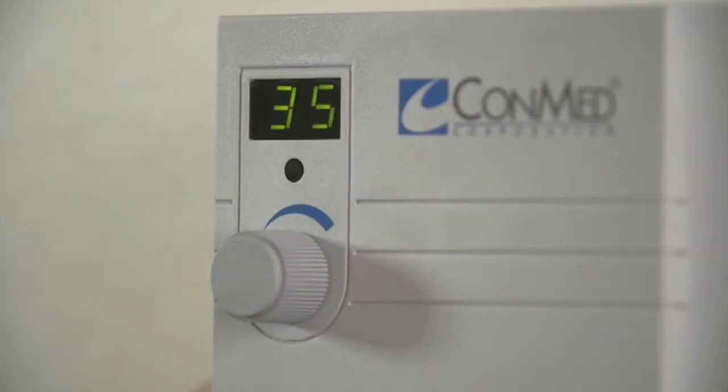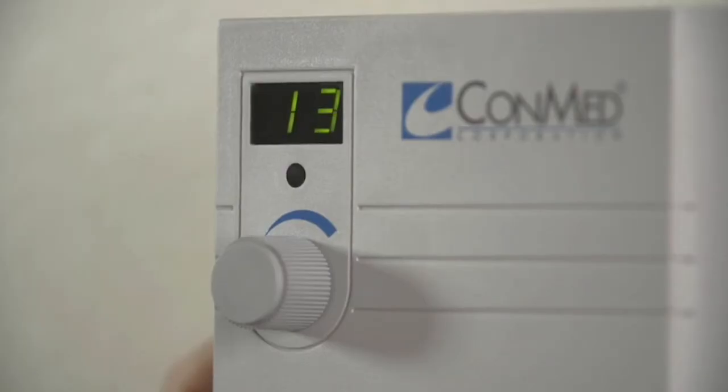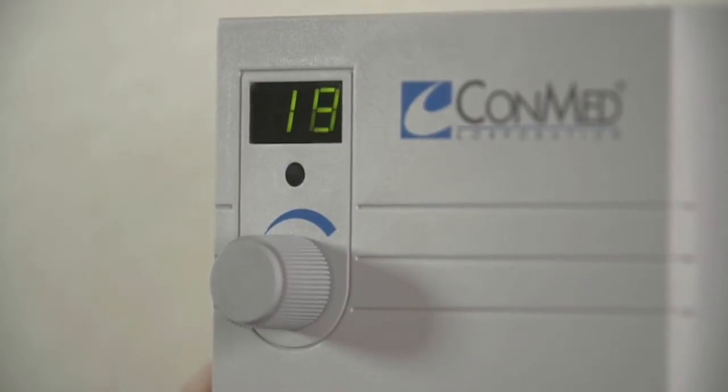I can also control these numbers on the handpiece pencil by using the handpiece itself. So in the middle of the procedure, I don't have to go over to the instrument on the wall. I can make my adjustments right here on the handpiece.